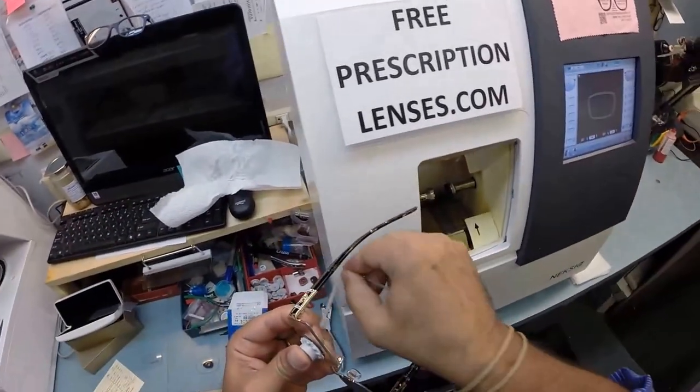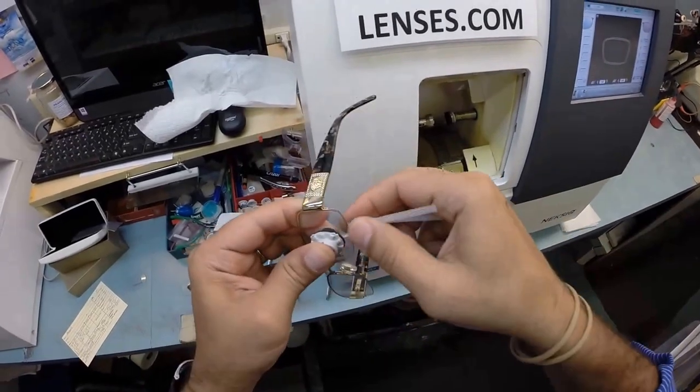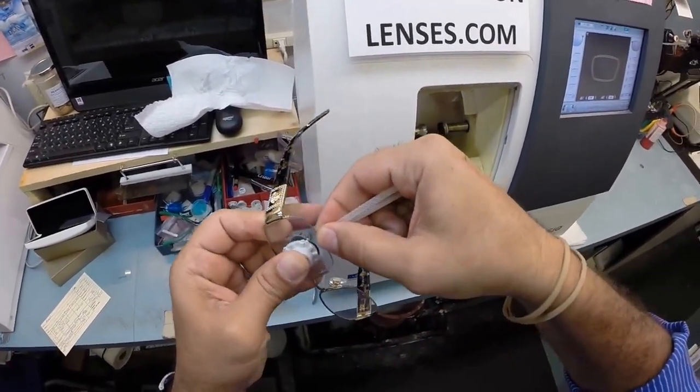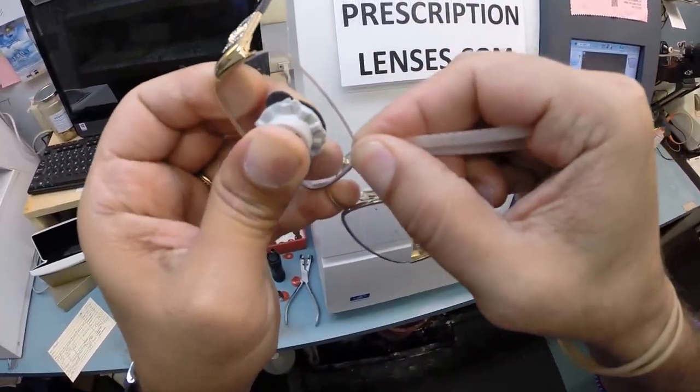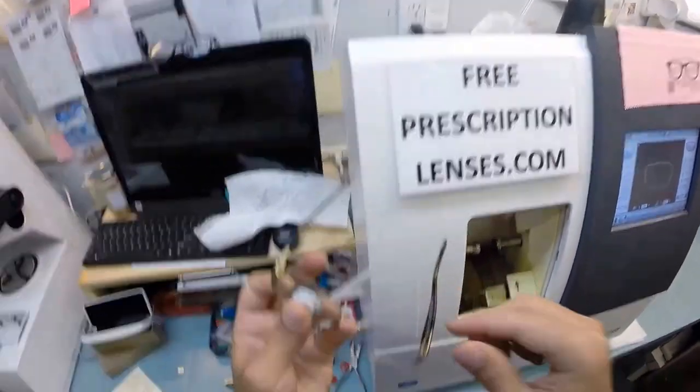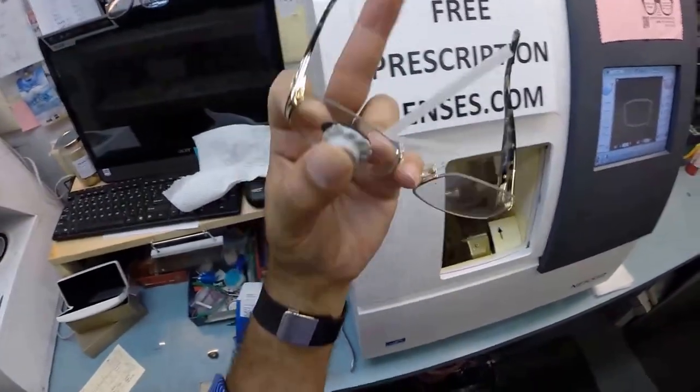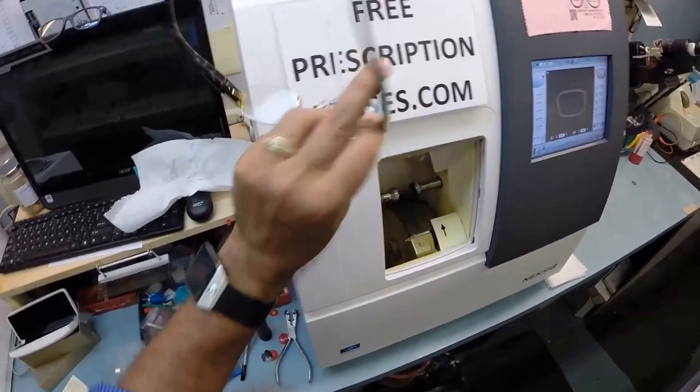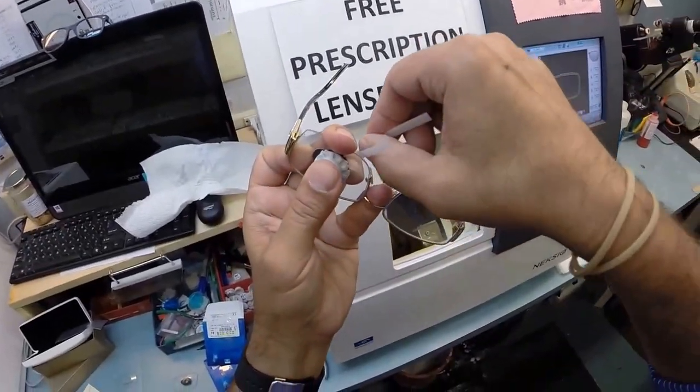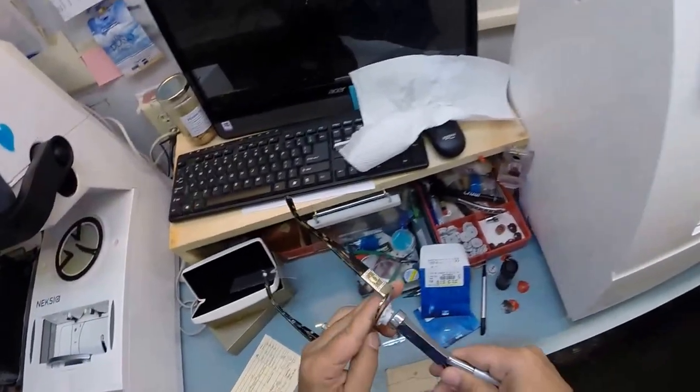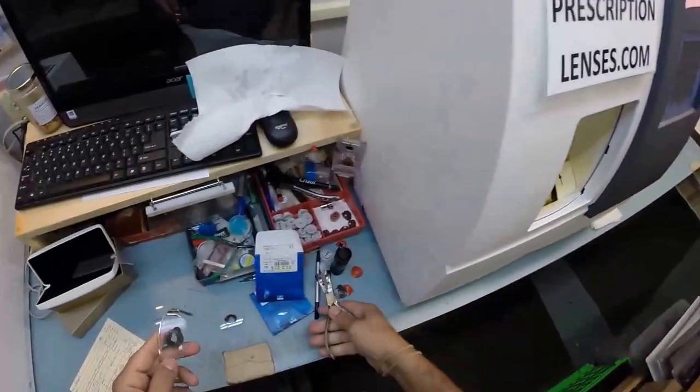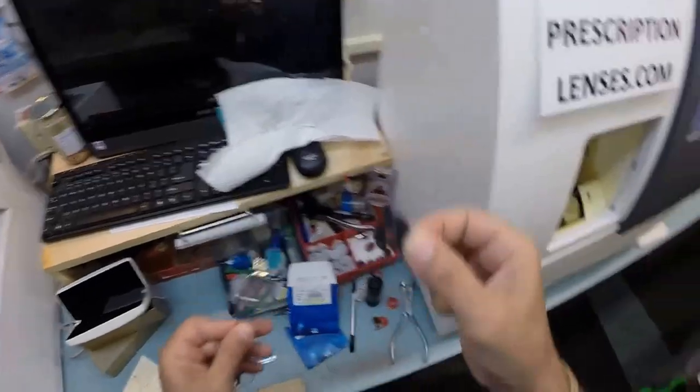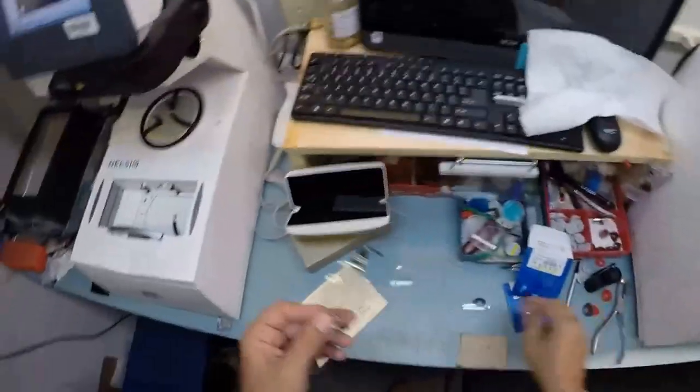I'm going to take out your original demo lenses, the one that says Versace. I'm going to put the lens in, tuck the lens in. Where's my little strap? I've already lost it, there it is. Grab my strap, grab the string with it, fold it in half, tuck it in at the outside corner, work my way towards the nose. And when you hear the snap, it is in there. Oh snap! Again, using this finger. For those of you who can't see through my hand, it is this finger. Place that onto the strap and then pull that out. And take the block off. I'm going to knock your block off. And then pull that sticker off. I'm going to pull your sticker off!